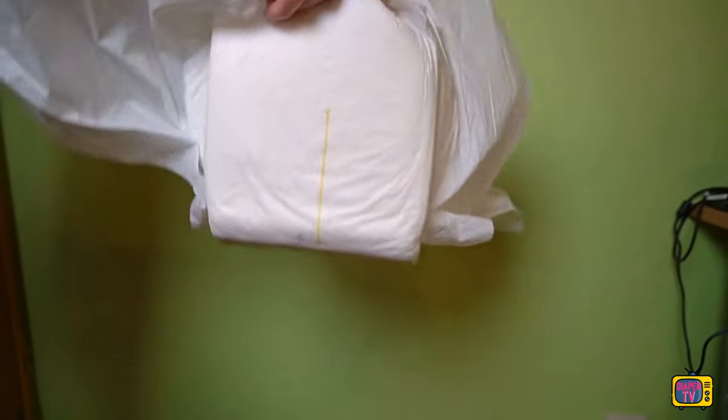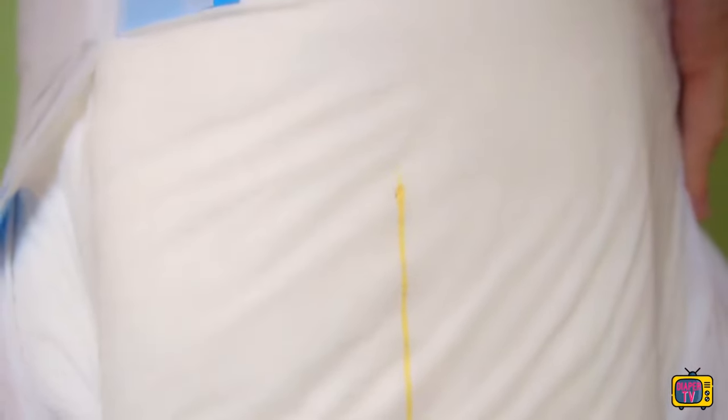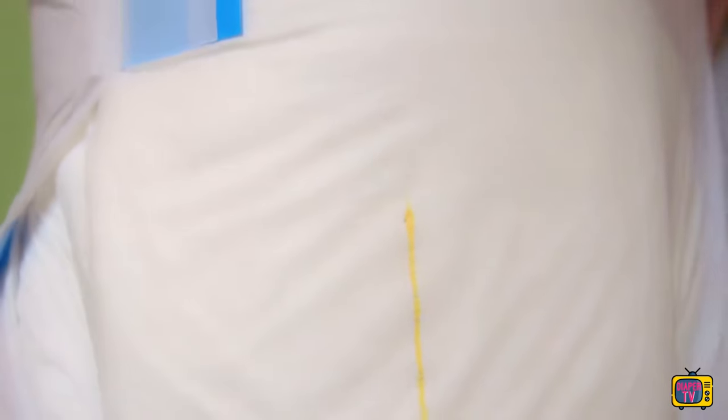The diaper is put on with disposable plastic adhesives. These are the typical blue and white adhesives, where the blue adhesive protects the foil so that you can easily stick the diaper back on after changing — over the white ones — or have a second chance if they don't fit well. However, the film tears easily if you stick the white adhesive directly on without the blue one underneath.